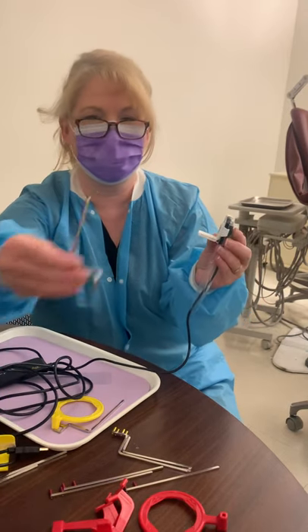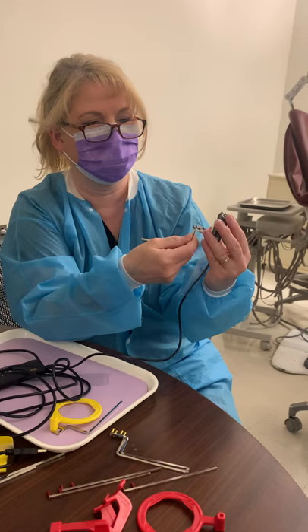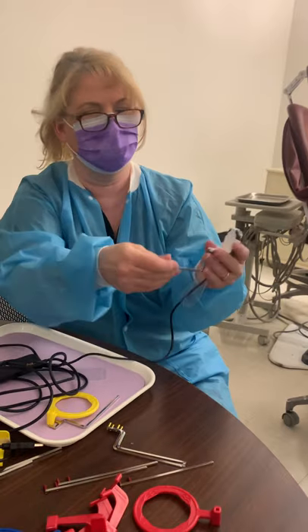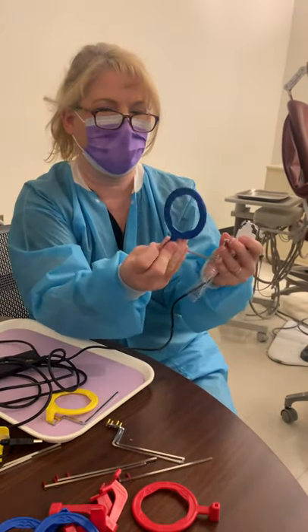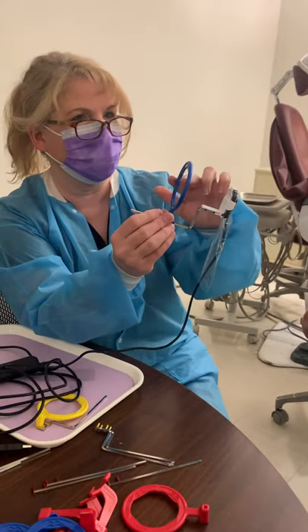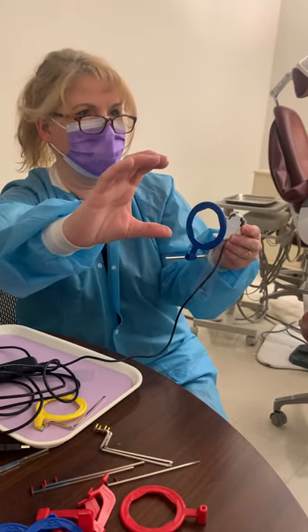For instance, now this is set up vertically, so this is going to be an anterior. The bite block stays the same, and now I connect it to my rod, and then I connect the rod to the ring.